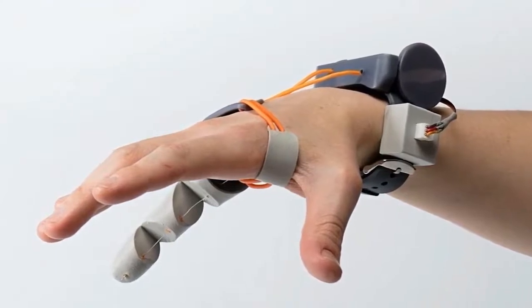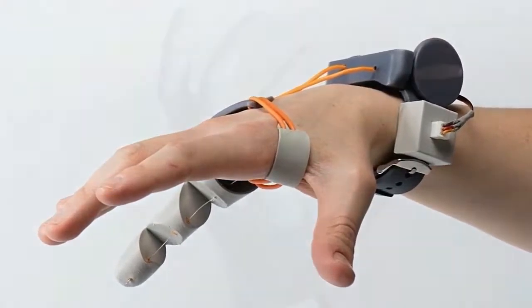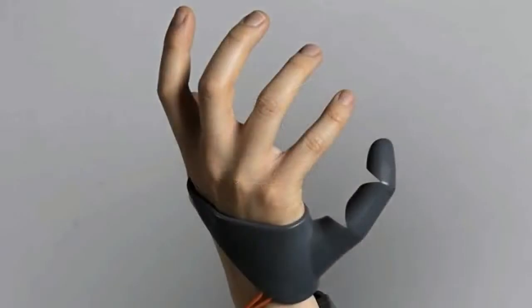Claude said that she linked the thumb to foot controls because with actions like driving, using a sewing machine or playing piano, we already have practice completing tasks that require hands and feet to work together. Claude says the project is meant to explore how we can add capabilities to our bodies with prosthetics.